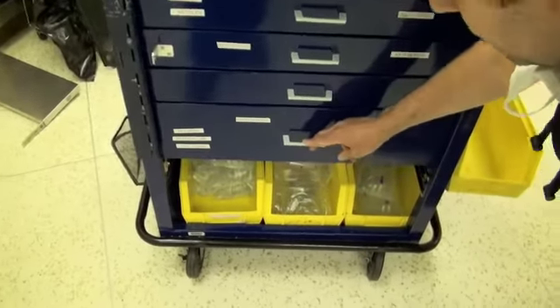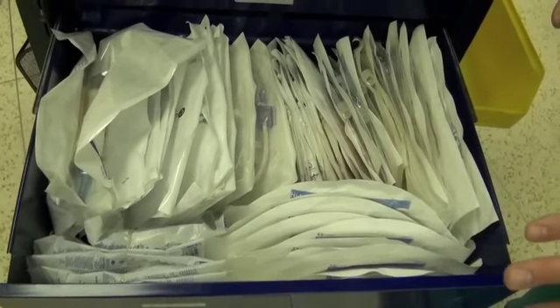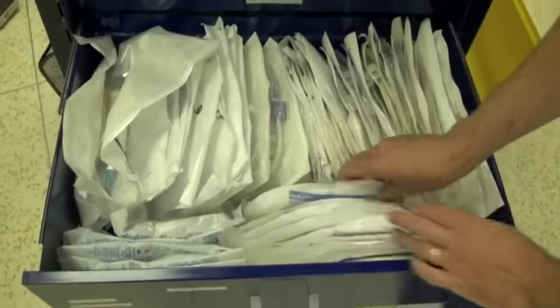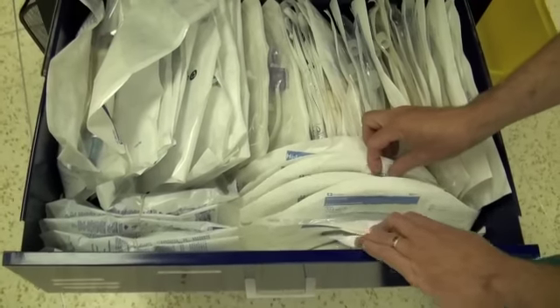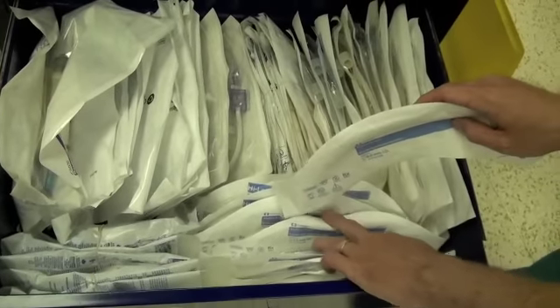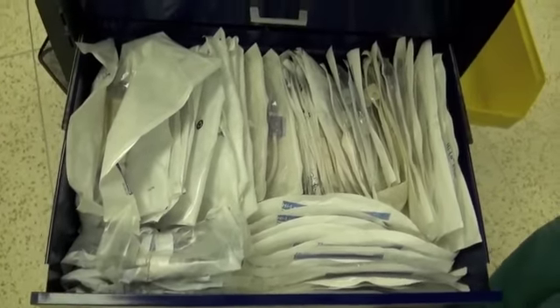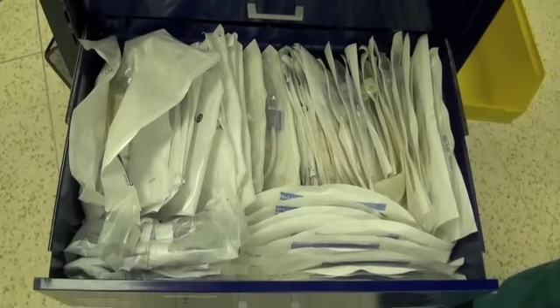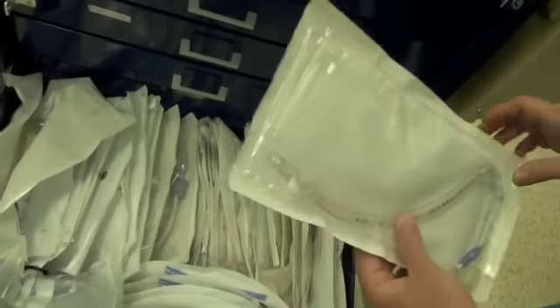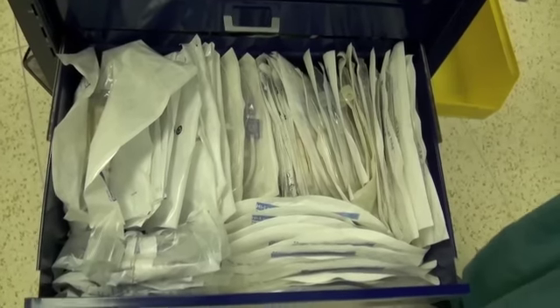Our lower drawer, the last drawer, essentially contains all our big equipment. All our endotracheal tubes are in this drawer — standard tracheal tubes of various sizes. The biggest size we keep is an 8.5 and the smallest is a 6. Most women will tend to get a 7.5 tube and most men will tend to get a size 8 tube, with some variation. There is also IV tubing in here. There are other types of endotracheal tubes — this in particular is a nasal RAE tube, and we also have oral RAE tubes. If you want more details about those types, discuss it with the staff you're with.